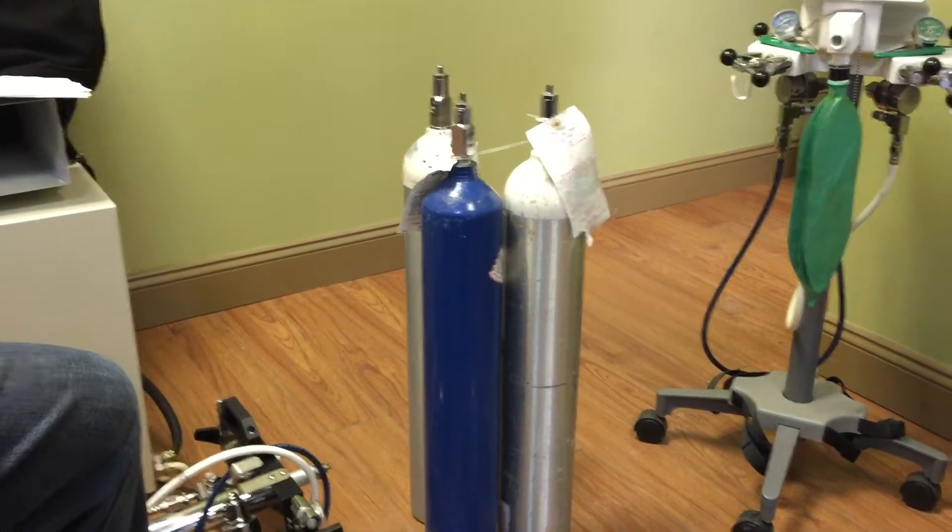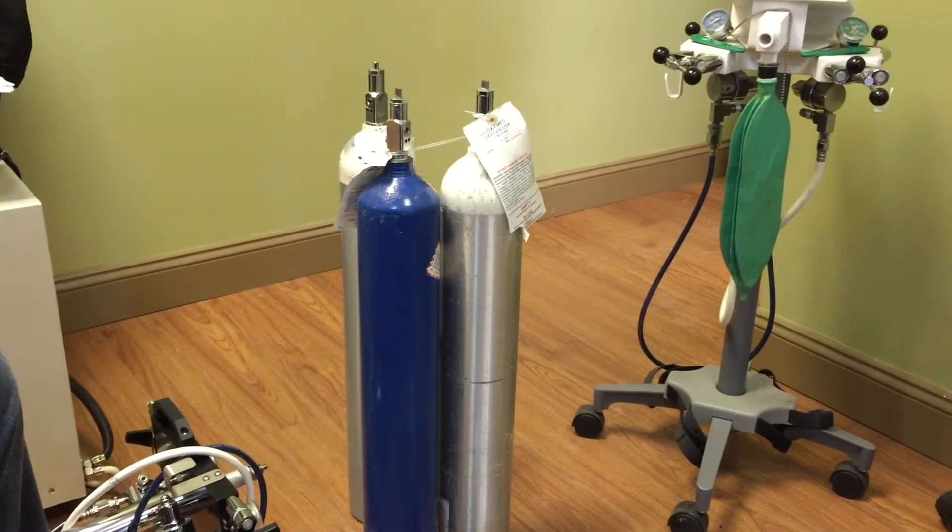Okay, so what we're going to do is assemble a digital MDM from Matrix, Parker Porter Matrix.